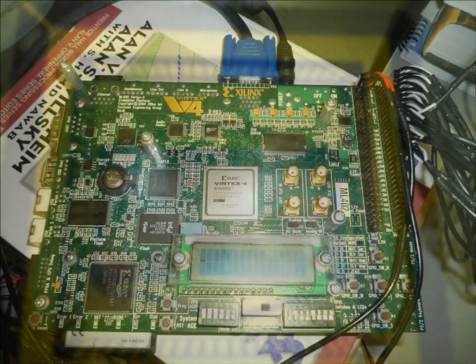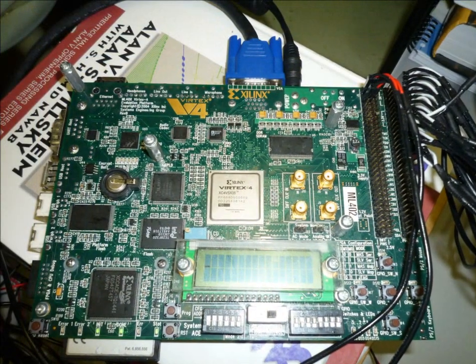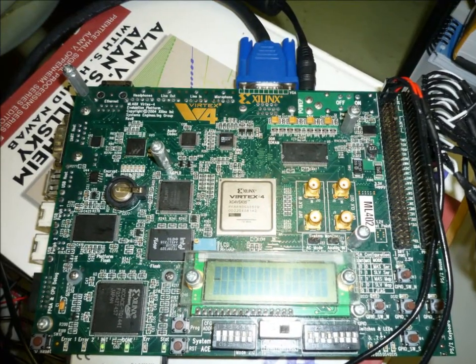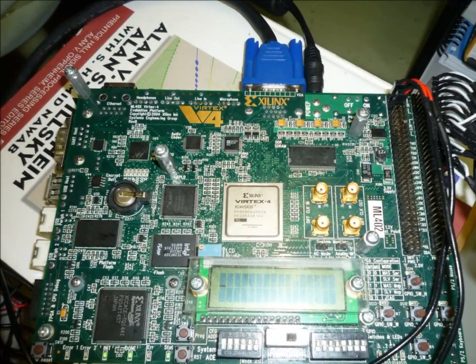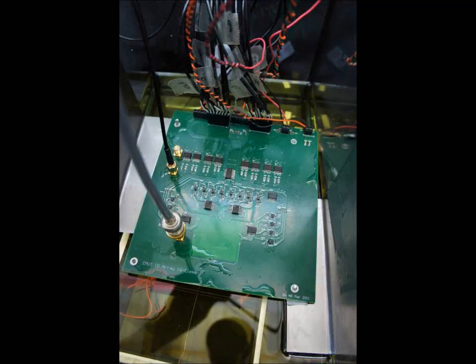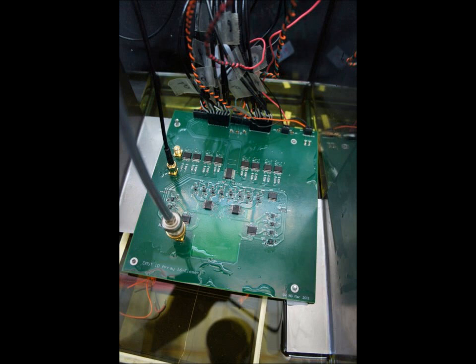Right here is the FPGA component that was implemented to allow for real-time capabilities of the system. The Printed Circuit Board contains all the front-end electronics and includes the socket to hold the CMUT.